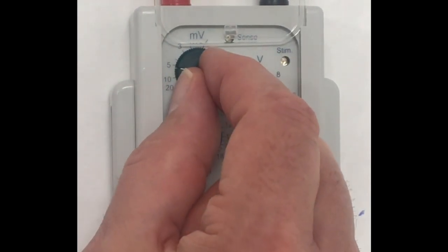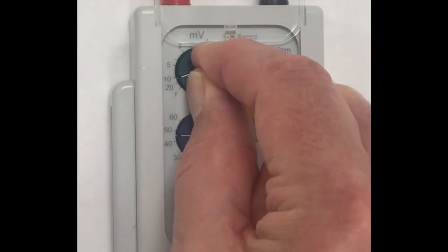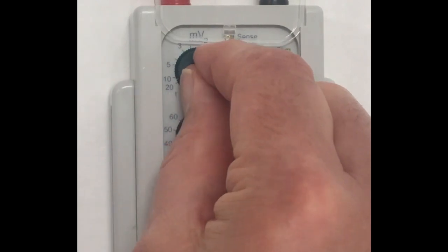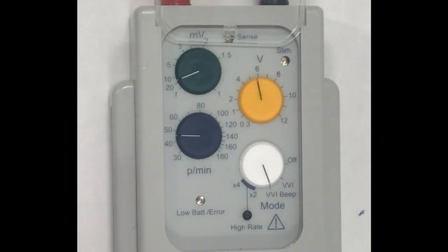I will keep increasing, and at a certain point it won't see the sensed event anymore because it will be smaller than the sensing threshold.